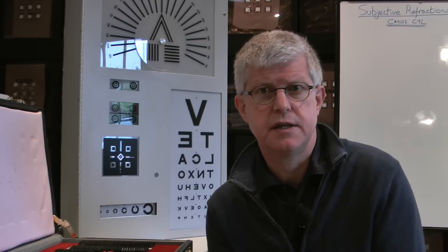Hi. We've been doing a series of training videos on the subject of subjective refraction, and we've been keeping it fairly simple up until now. We've been dealing just with the equipment that you need and how to achieve that best vision sphere. But we know that most people who have ametropia, who have refractive error, have what we call astigmatism to some degree or another.